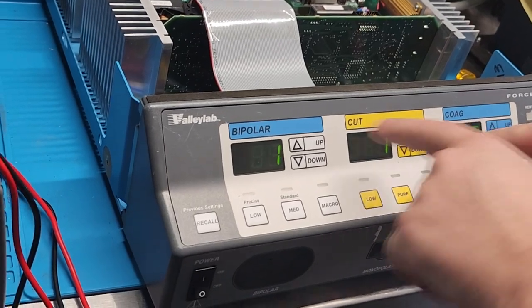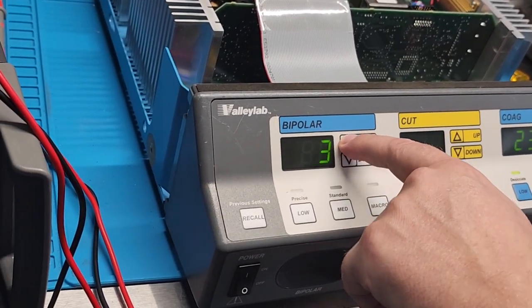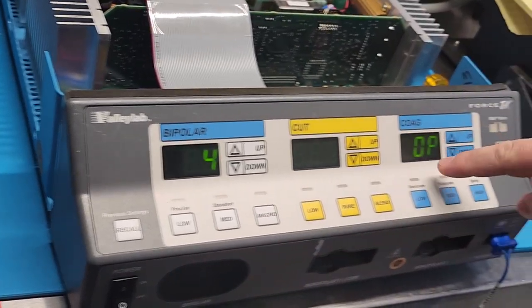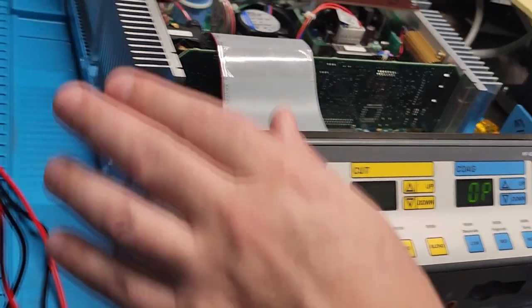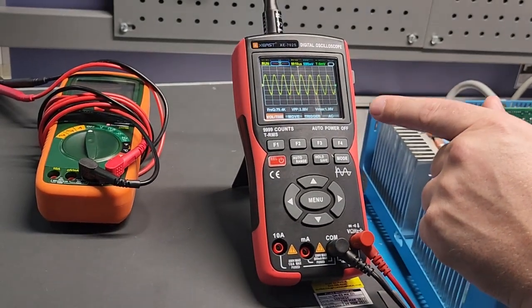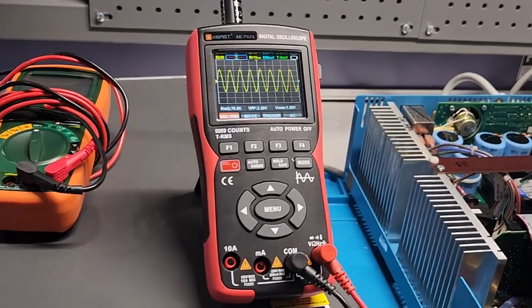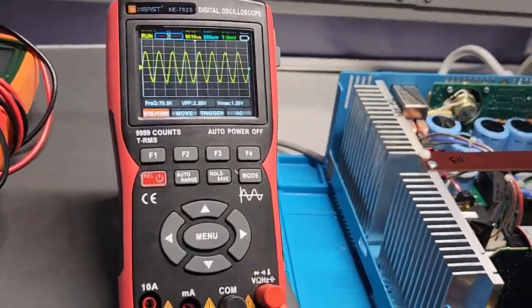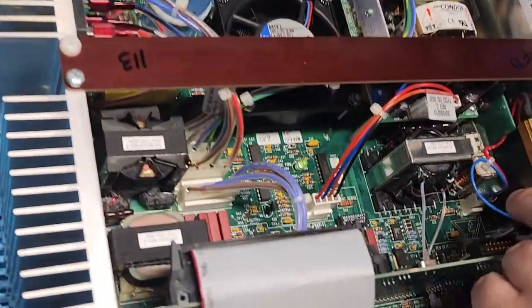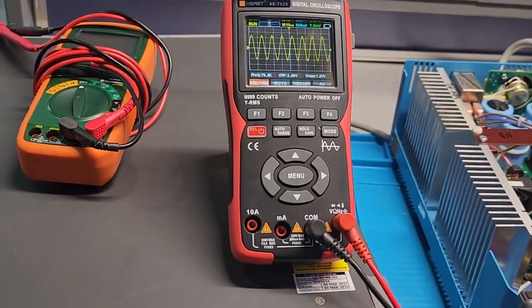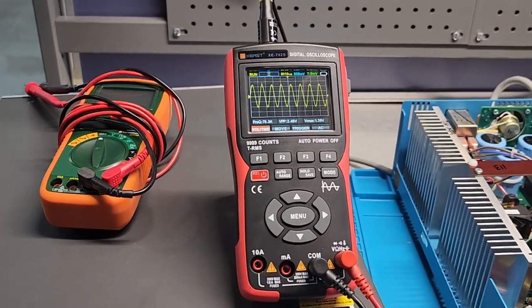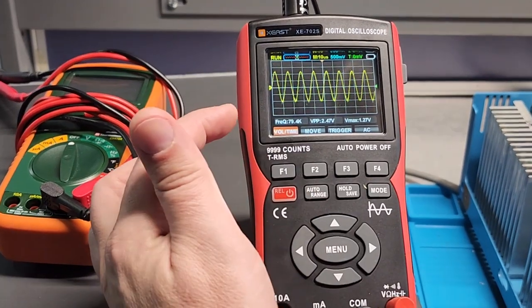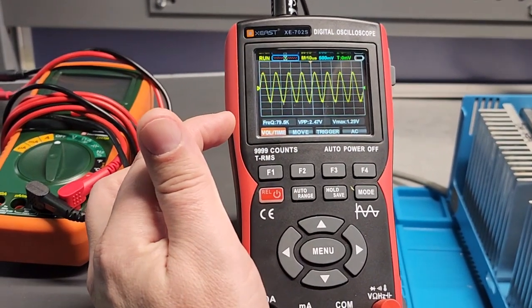We're going to go into a programming mode. So here we go. It's on OP, which normally stands for open. And our oscilloscope is currently at 79.4. So what the instruction tells us to do is to go ahead and look at our oscilloscope. And we're going to adjust the amplitude and the frequency. So we want to stick around 80 kilohertz.